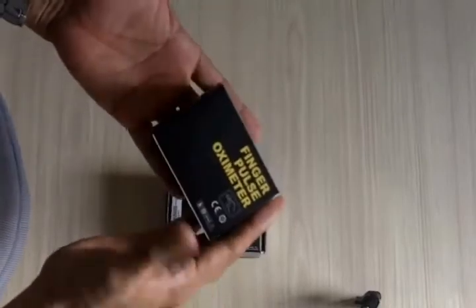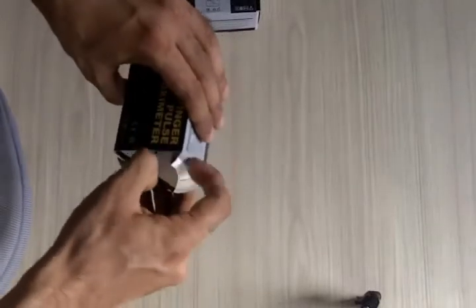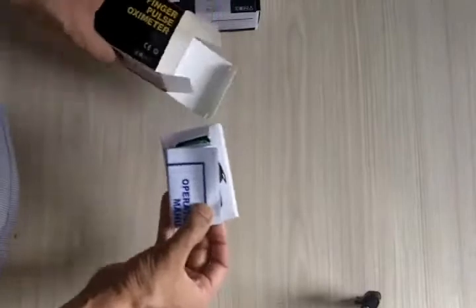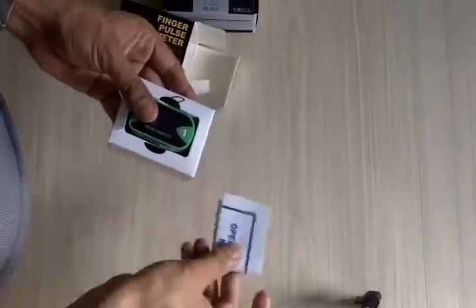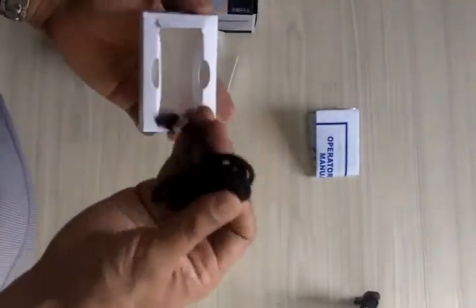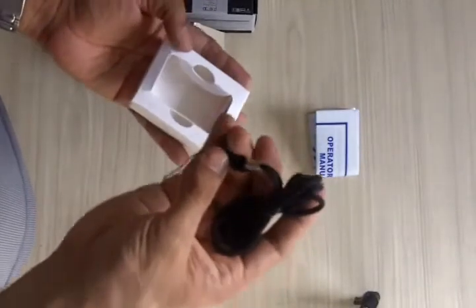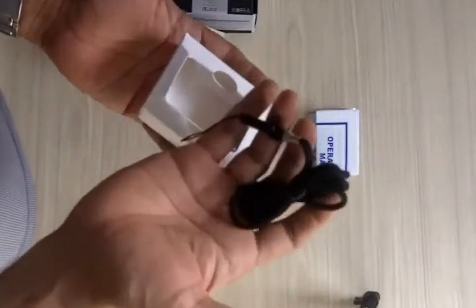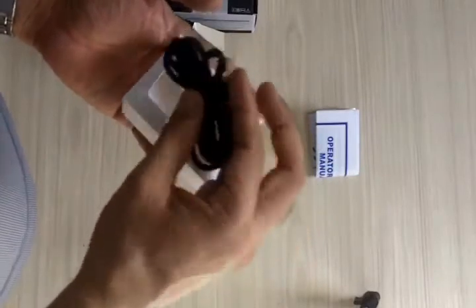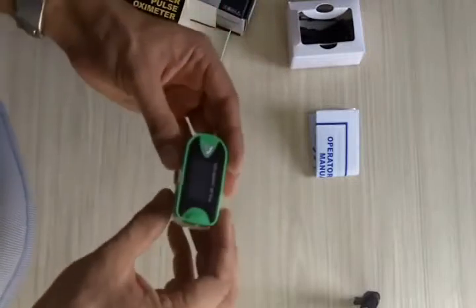The typical product will come like this in a small box. As you can see, it can easily fit into the palm. Once you open it, what you'll find inside is the operator's manual, the pulse oximeter, the battery, and a small chain to hold the device and prevent it from accidentally falling off.